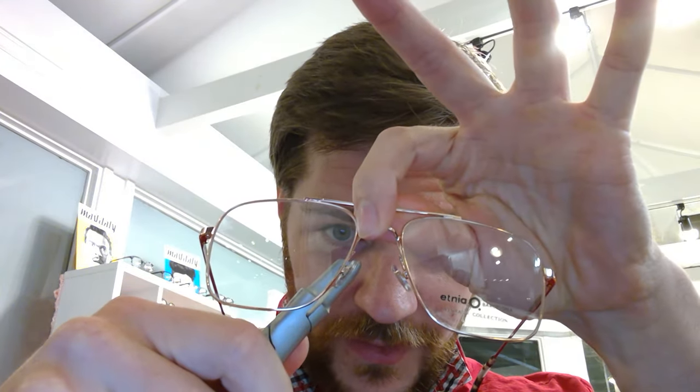This one is okay here but it's not quite sitting flush on top, so we're gonna adjust that one just a hair. This one is okay this way but we've got kind of a cant to it which is not working well - that's what's causing that pressure. So we'll adjust that angle. These pliers are the best for that. Now this is a specialty set so they're not cheap unfortunately. With regular pliers you're more likely to slip, scratch the lenses, and snap that solder joint. With these you can very easily adjust the angle of that splay.